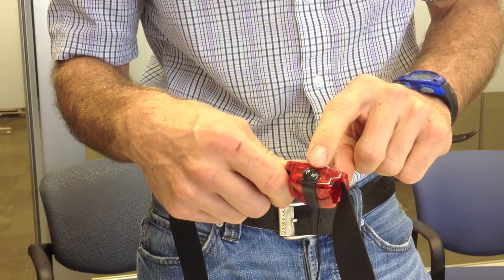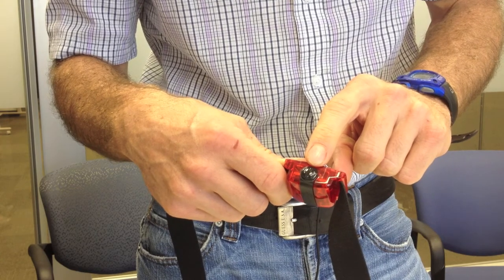Let's show you how to put the accelerometer on and how to wear it properly. There's a little knob at the top that has a screw top — that's going to be up. And what you'll do is you'll put it right above your hip. So if you're wearing jeans or something like that, it can go above your belt. And if you have a dress on, it can either go on top of the dress or under the dress.